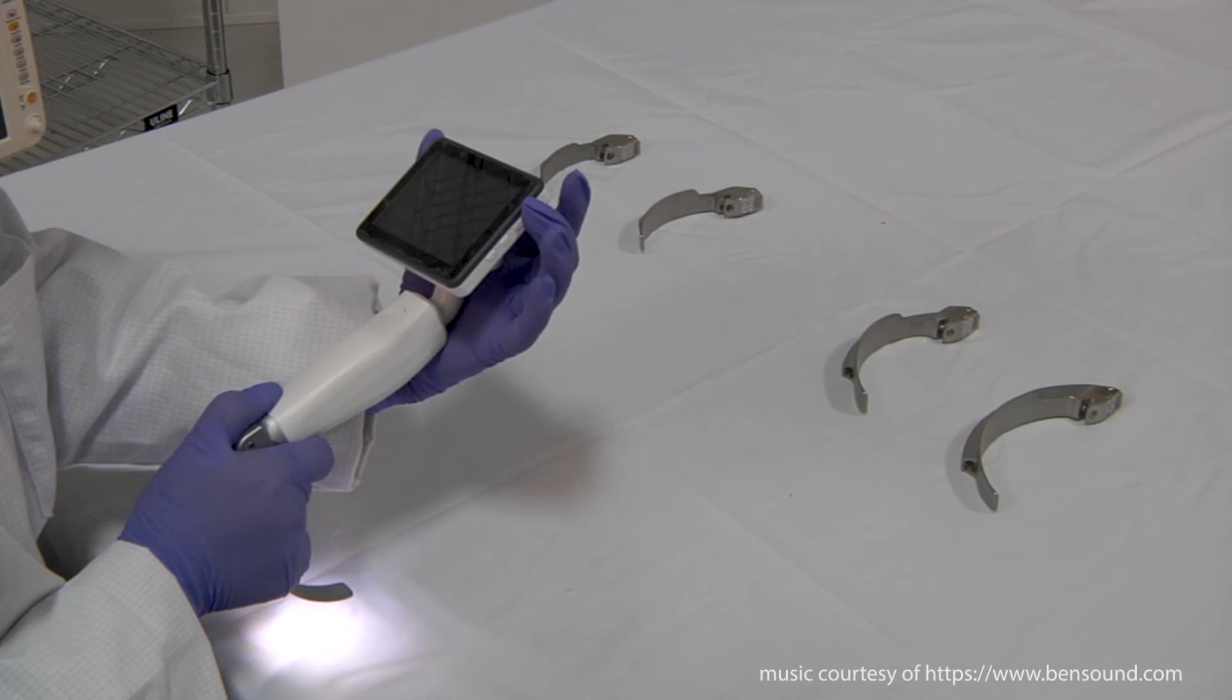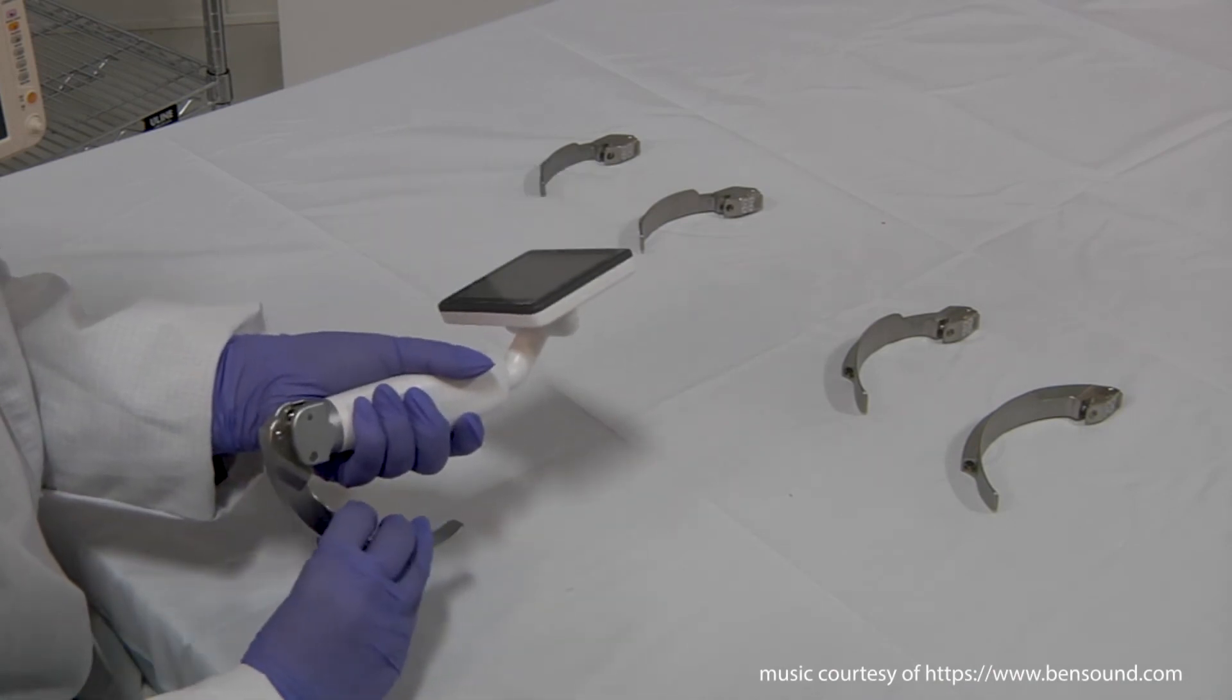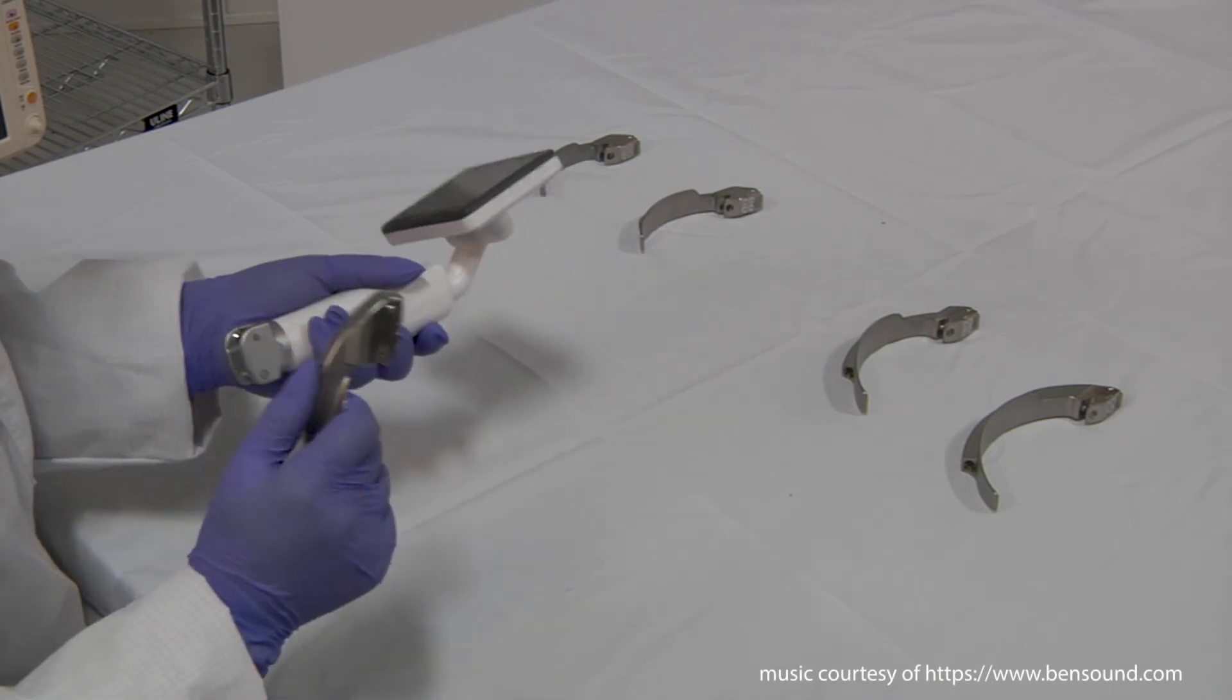After the procedure is done, detach the blade from the unit and select a proper method of cleaning before storing it in the case.